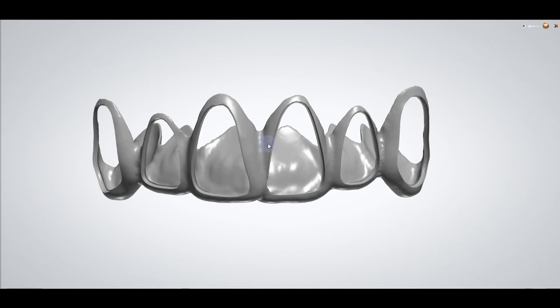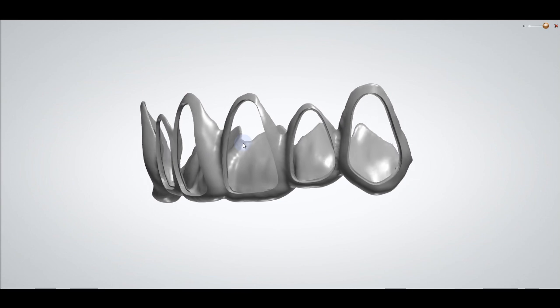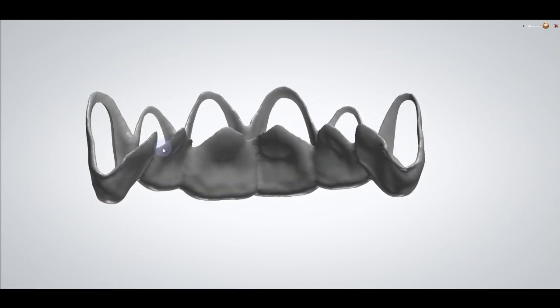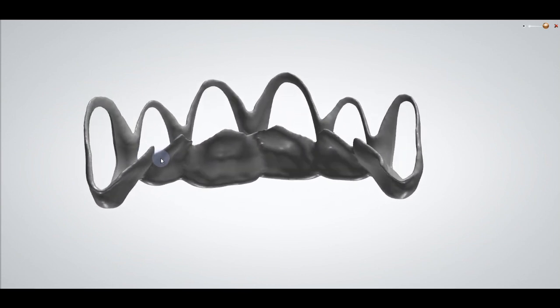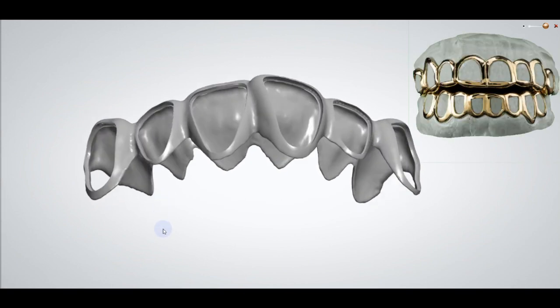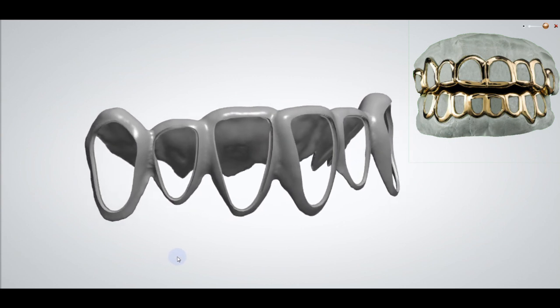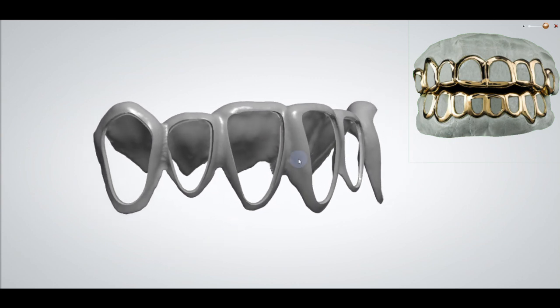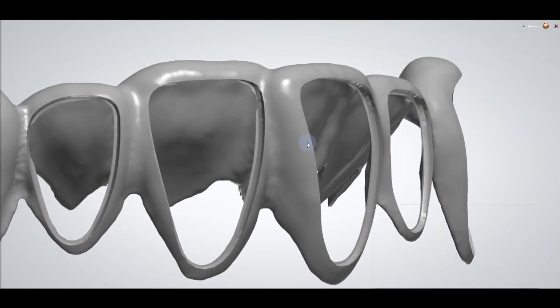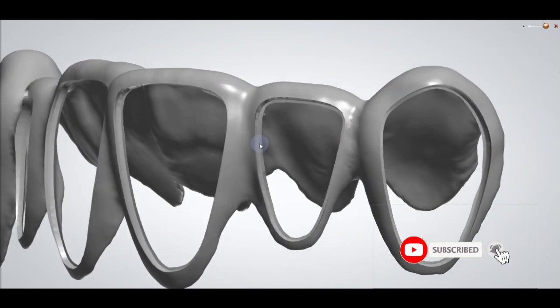Welcome to the channel. Today we're going to have a special video because we're going to talk about a window crown. This application can be used for different methods like gingival reduction guides, or if you want to have a pre-treatment guide cutout, you can use this technique as well.